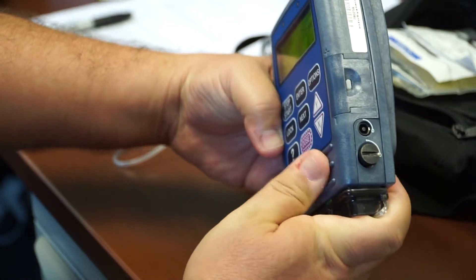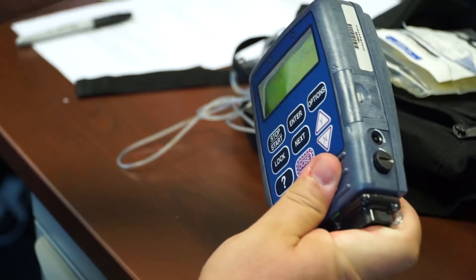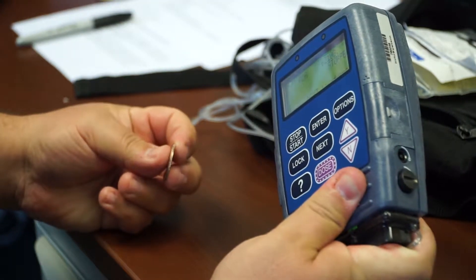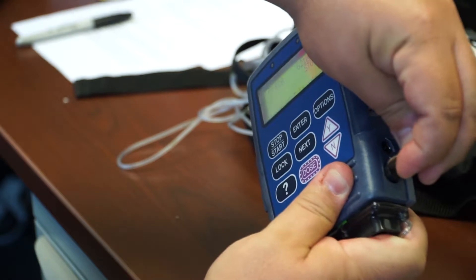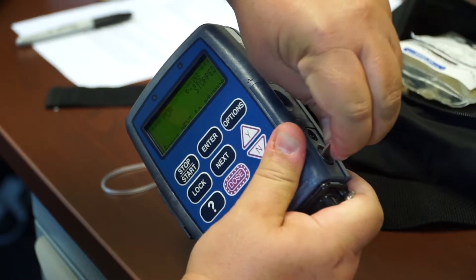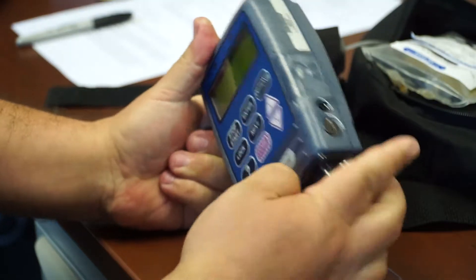And on the side, there is a slot twist locking mechanism. These CADD pumps normally come with some kind of key, or you can use a coin. You press it down, and then you twist the coin and the locking mechanism until it stops. And then it's locked in place.